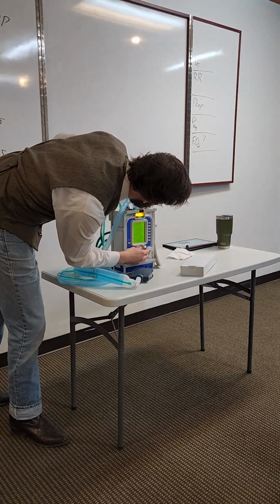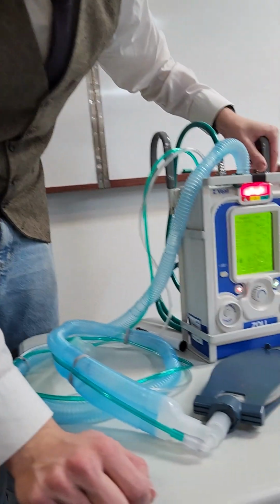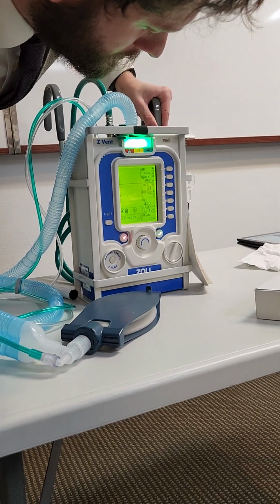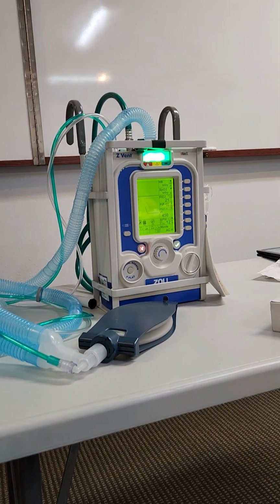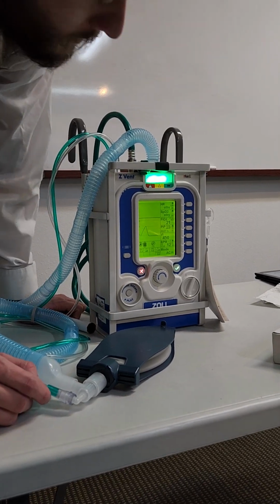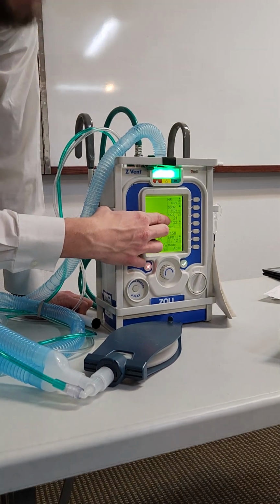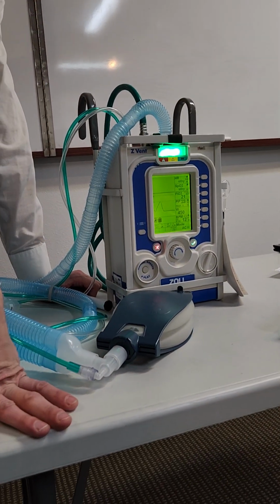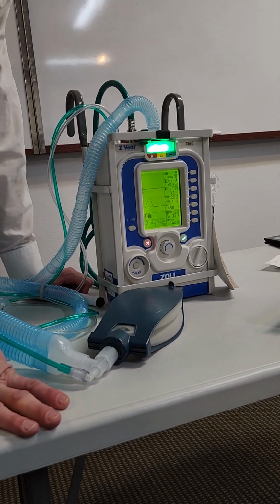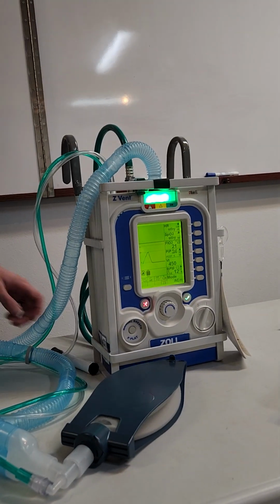So if we go to adult, select that, hook it up. Alright. There we go, and we're done. With this, we've got the FiO2 box, and then we've got our PIP is once again in the outlined numbers, letting you know that it's being measured. Below that, you see the PEEP, and then on the side, you've got the alarms for the different levels of PIP.